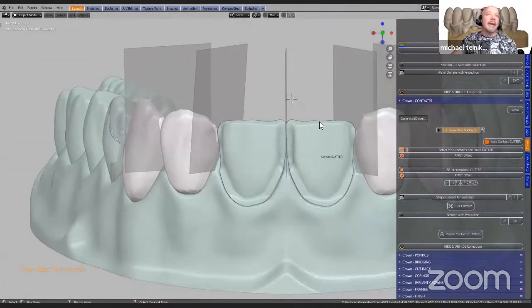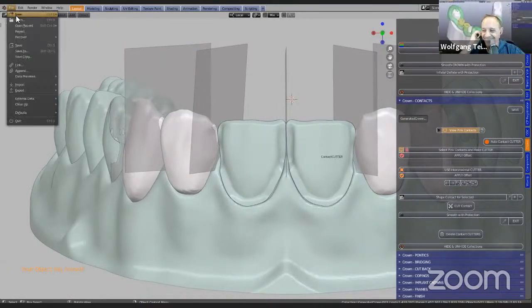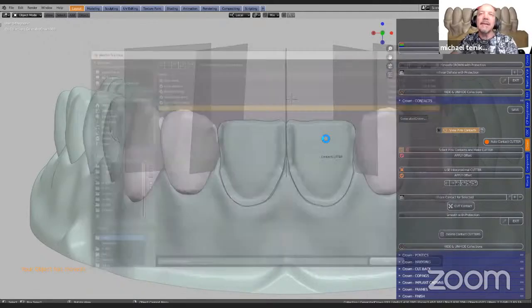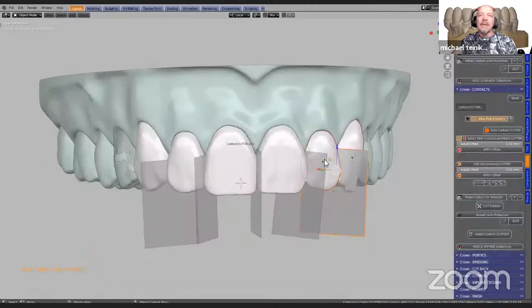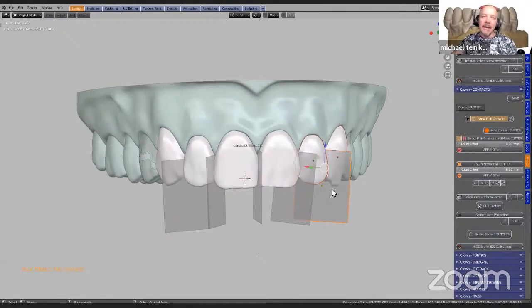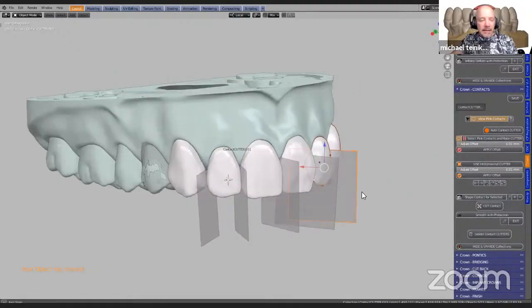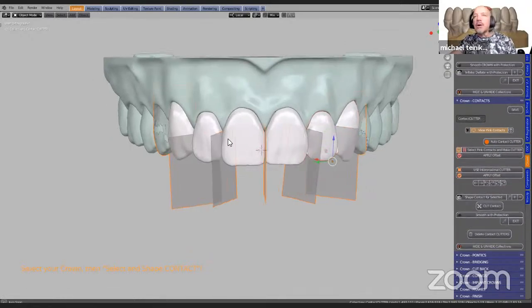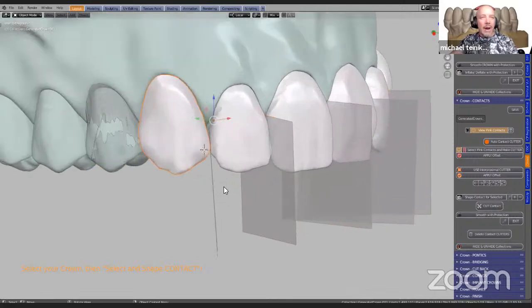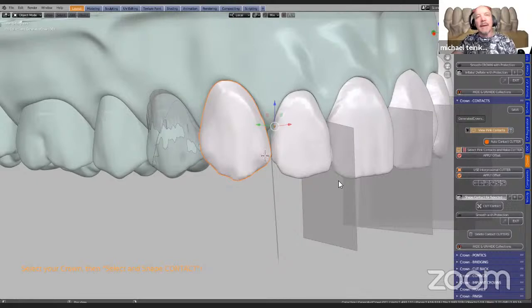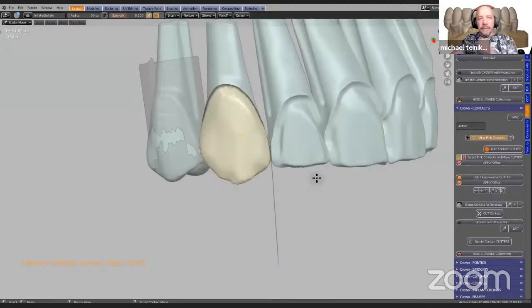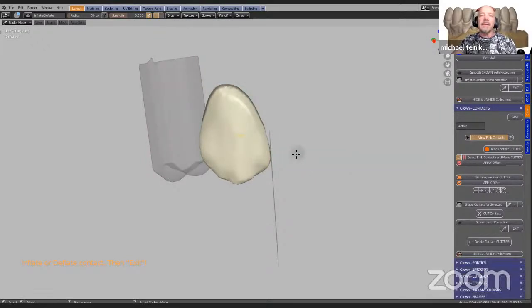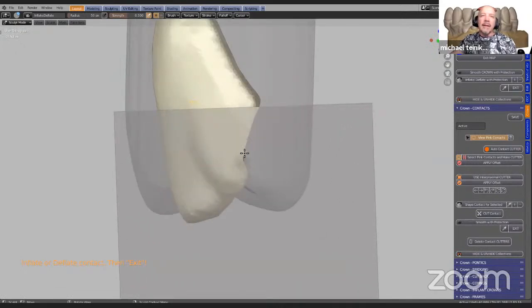I have pre-done this work. I'm going to open up my file. So that is the contacts, the contact cutters. I have set my contacts to something like this. Now we're going to manipulate these contacts — we're going to accept them, which joins all of these contacts together in one object. I'm going to select my crown and we're going to shape the contact. That will hide everything else except for the one I want to work on. I don't want to see my dies, so I'm going to hide my upper segments. Here I can see it's touching a little bit there.